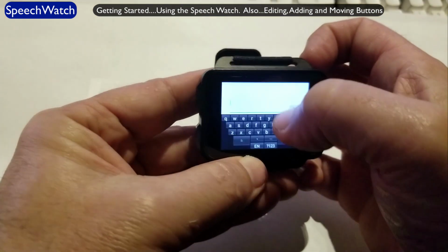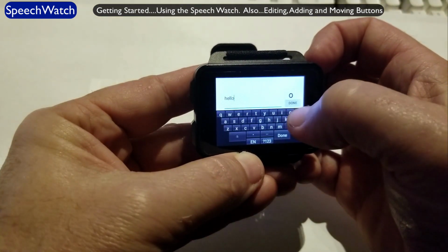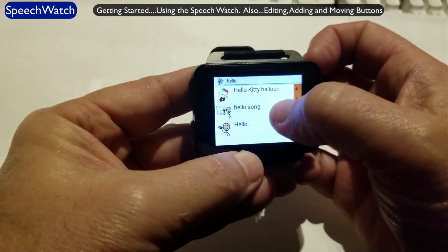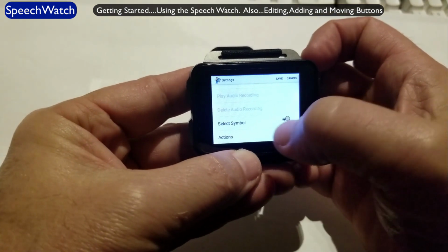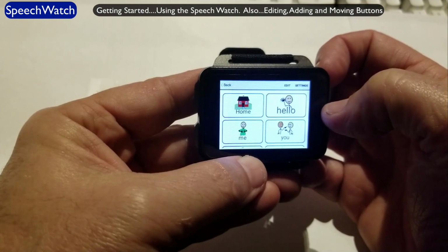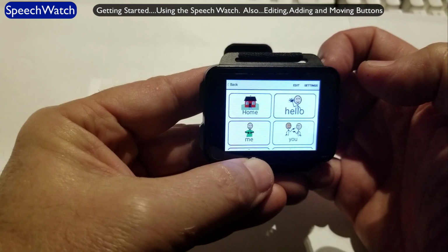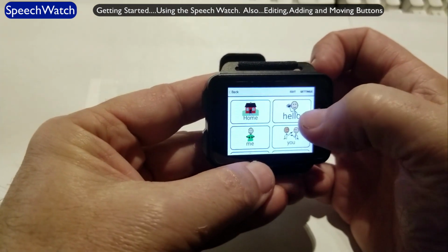And let's put a symbol on there. And I'll type in hello. And see what symbols pop up. This one's pretty cool. We'll just use that one. There it is. And then I hit save. I'm going to touch on it. Hello, my friend. How cool is that? Okay, so I showed you how to edit a button.